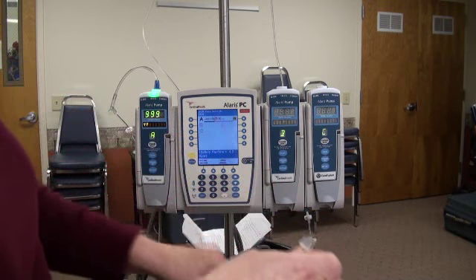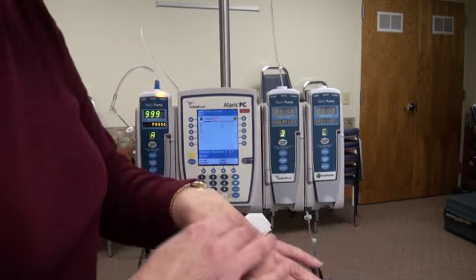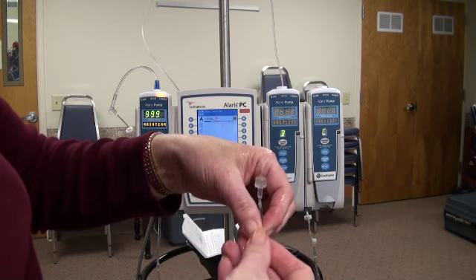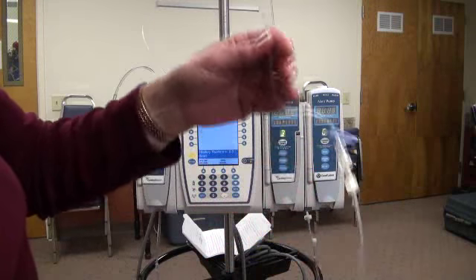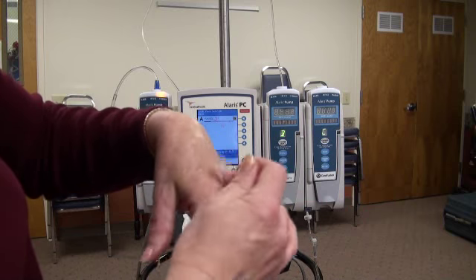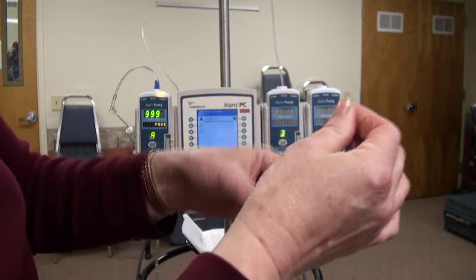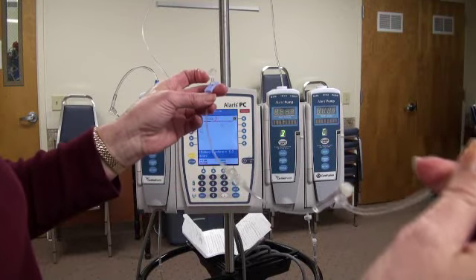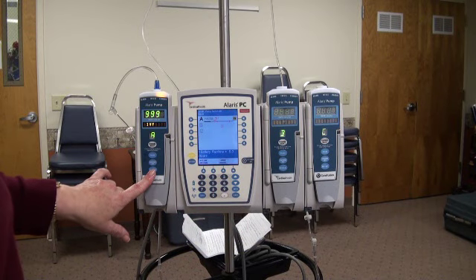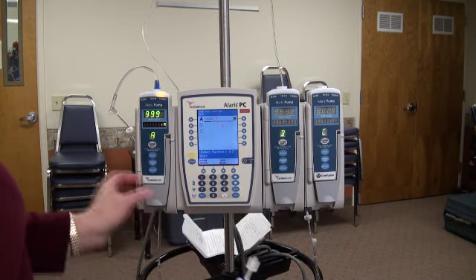Just different things to watch for. And this is where you need to troubleshoot. Like I said, watch for infiltration at your IV site. Watch for a kink in the IV line. And it can be even higher up. Say everything is connected to the patient and it was fine. When you went up the line, you noticed it was kinked. Unkink it, straighten it out, hit restart. That's what it's for here on the channel. Hit restart, and hopefully it starts running again.